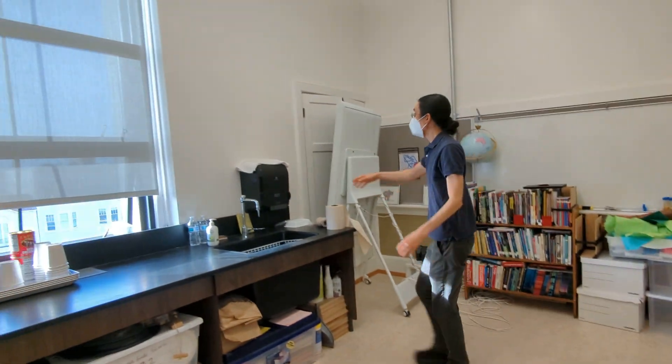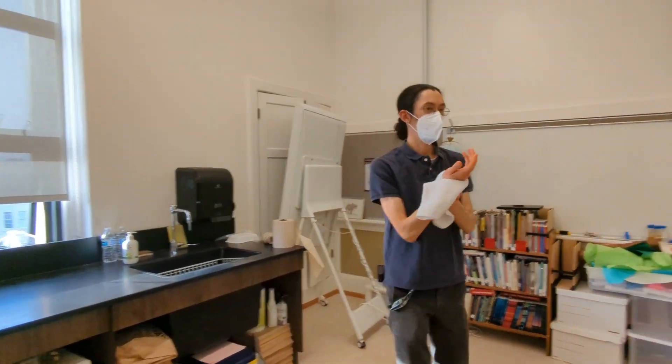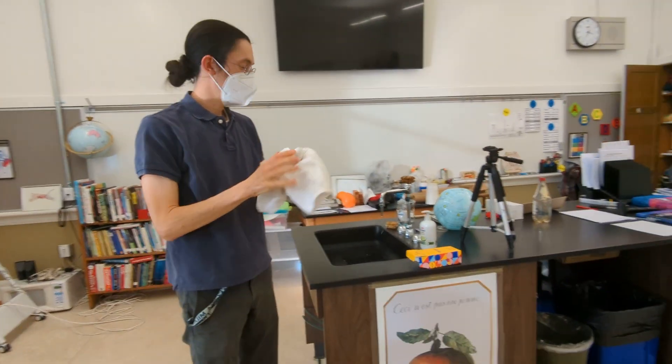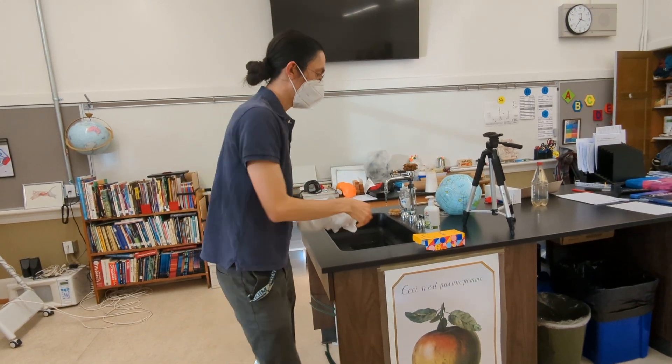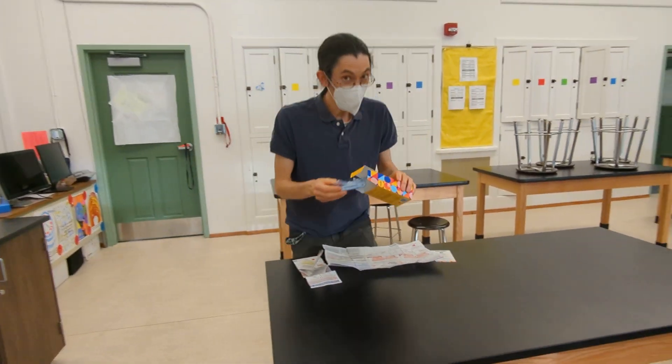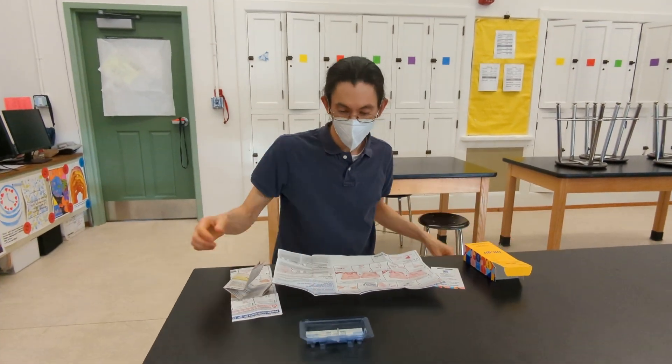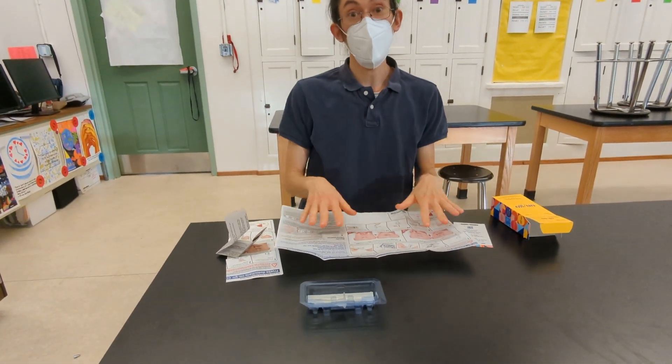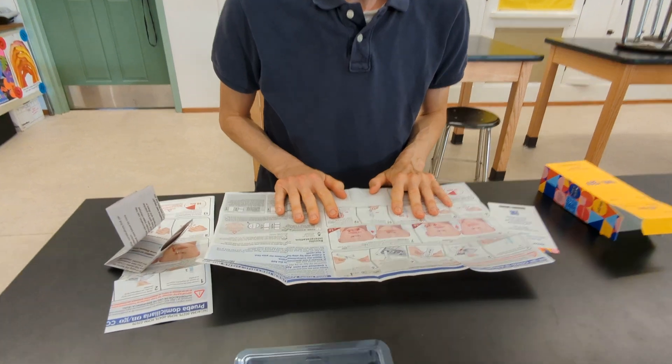Once you're done washing your hands, dry them thoroughly. Then you're going to find a nice clear table to set up and remove the contents of your test. Make sure you have your instructions out, they are in English and in Spanish.